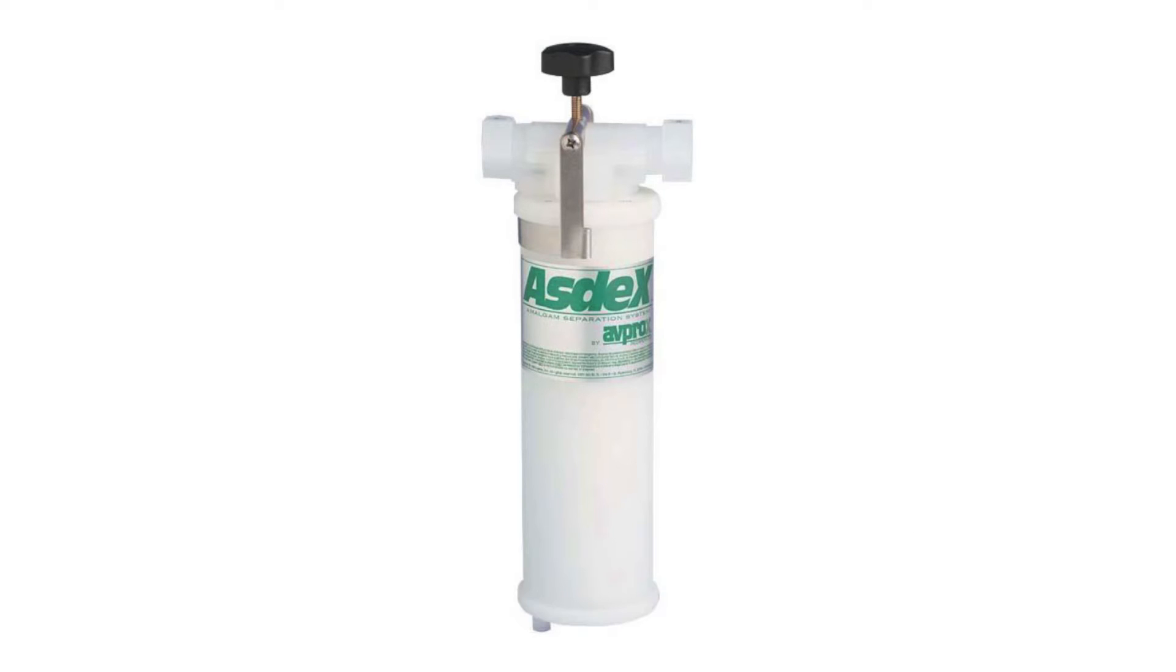The AS9 amalgam separation system consists of a collection separation filter, manifold assembly, mounting bracket and hardware.